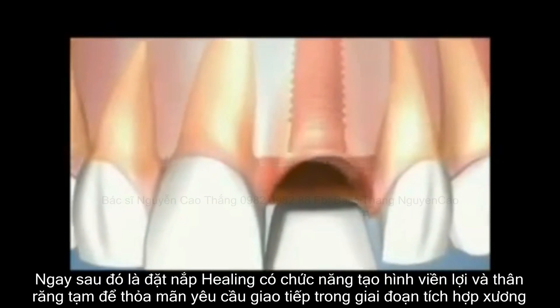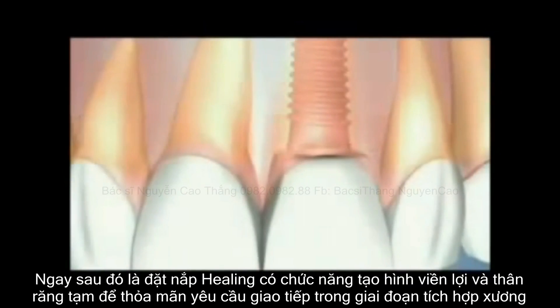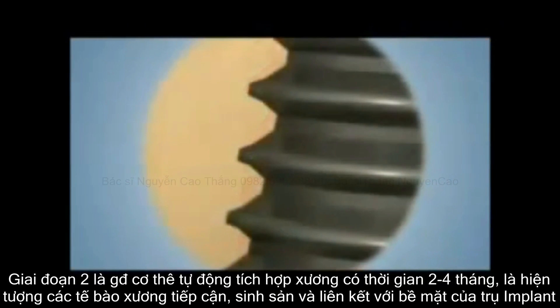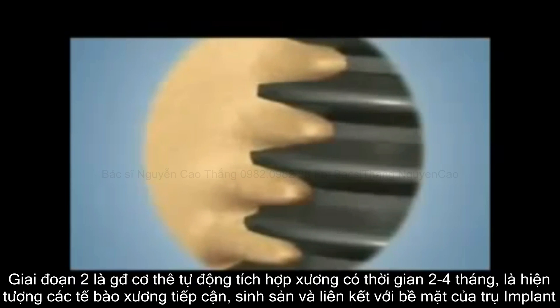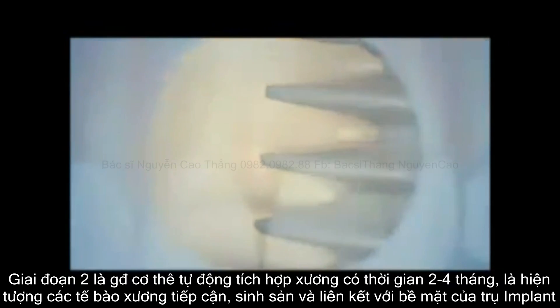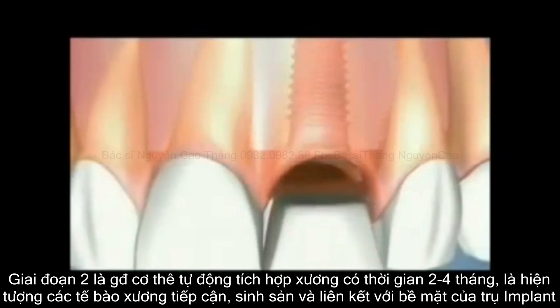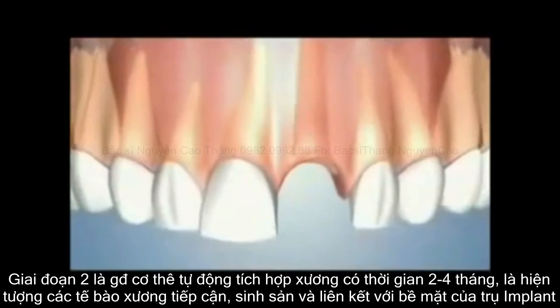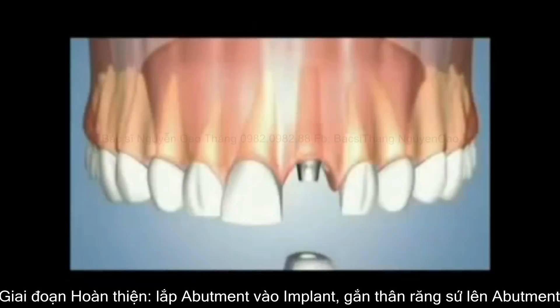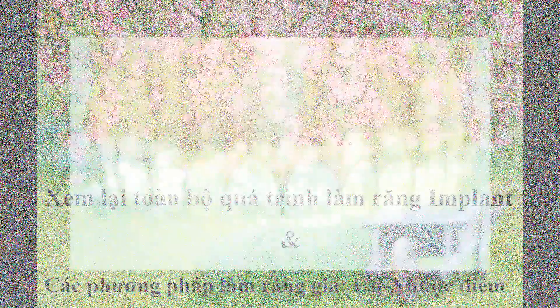Depending on the implant system, the gums may be sutured and a temporary denture placed. The site immediately begins to heal. A process known as osseointegration takes place, where bone molecules begin to attach themselves to the titanium surrounding the implant. It usually takes between two to four months for the bone to securely bond to the entire implant surface. The final phase involves the custom restoration being fitted and securely placed.